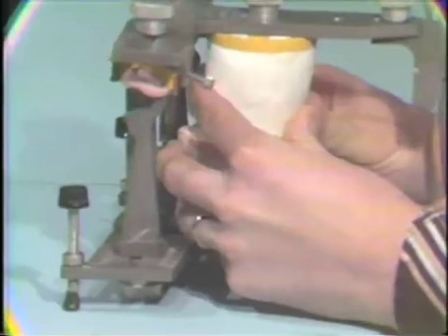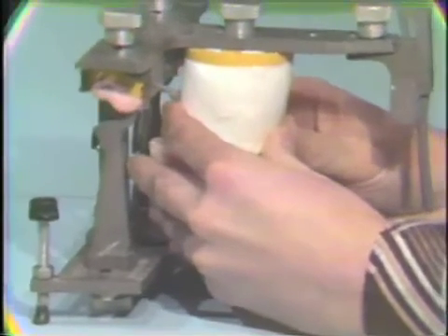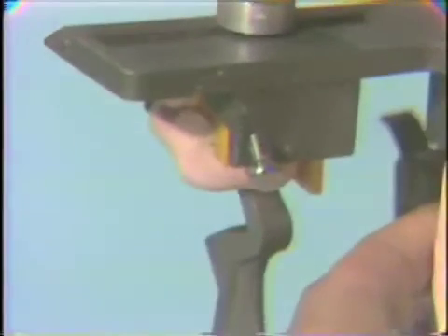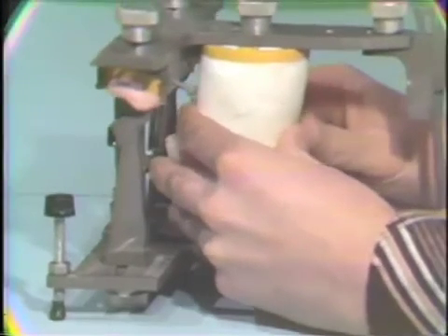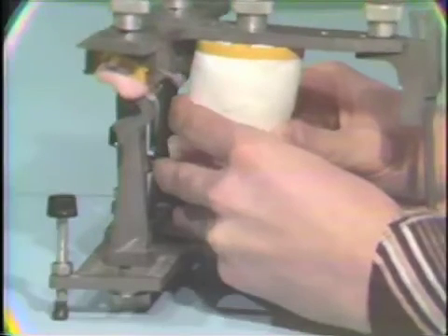Then we begin going through our border motions as dictated by our stereographic recordings. Again, it's extremely important that we hold these clutches in a similar manner and that they're in contact at all times.